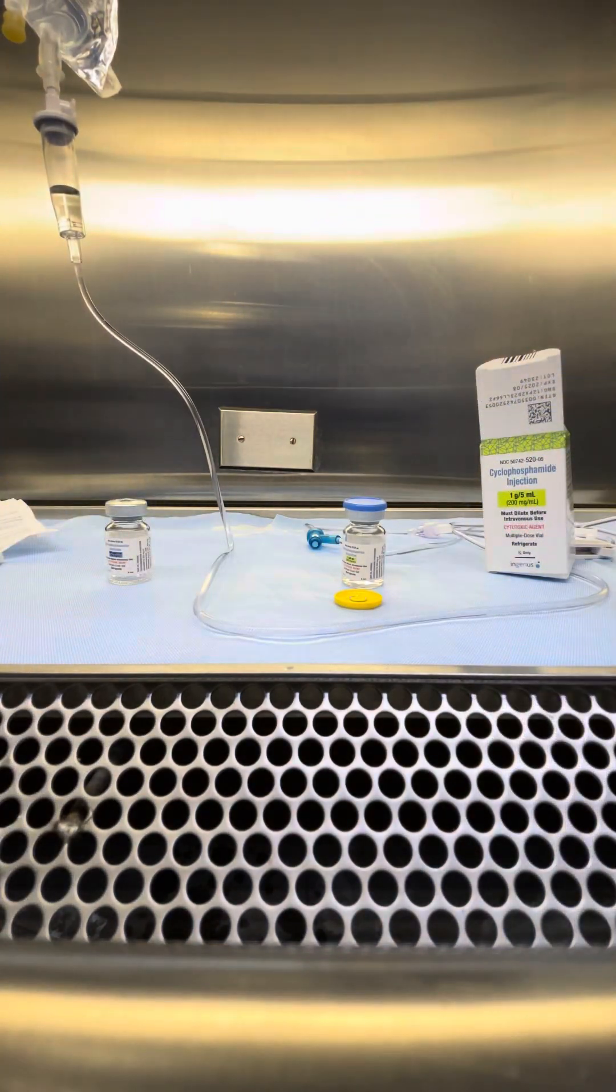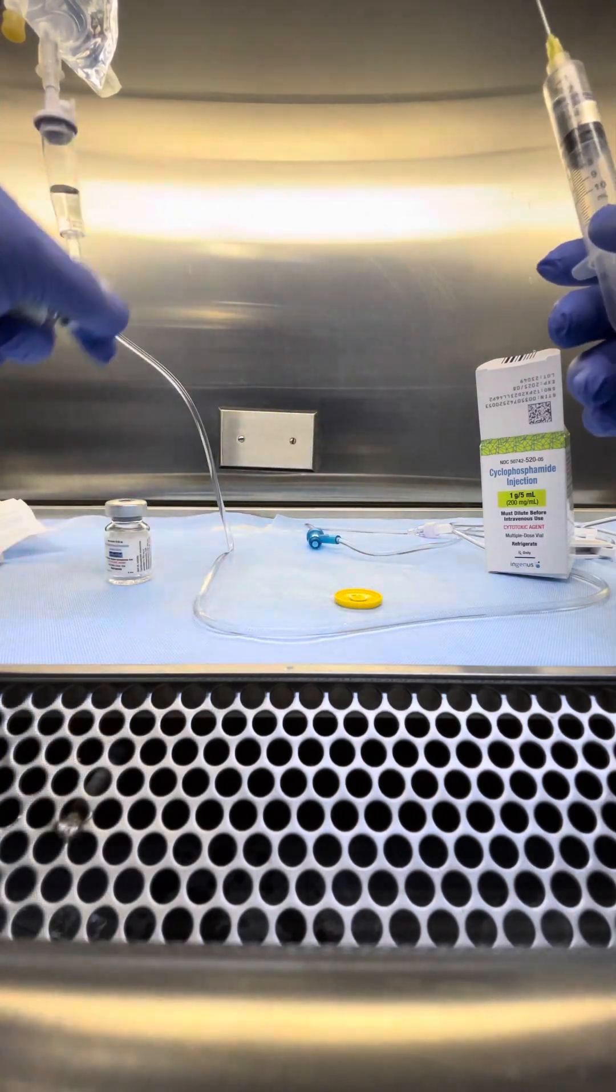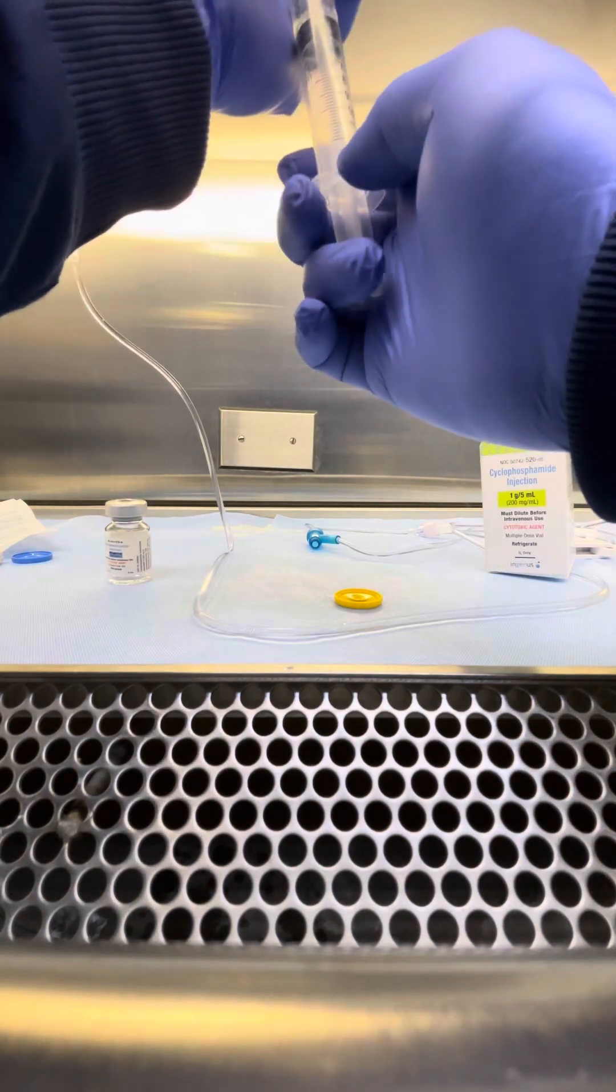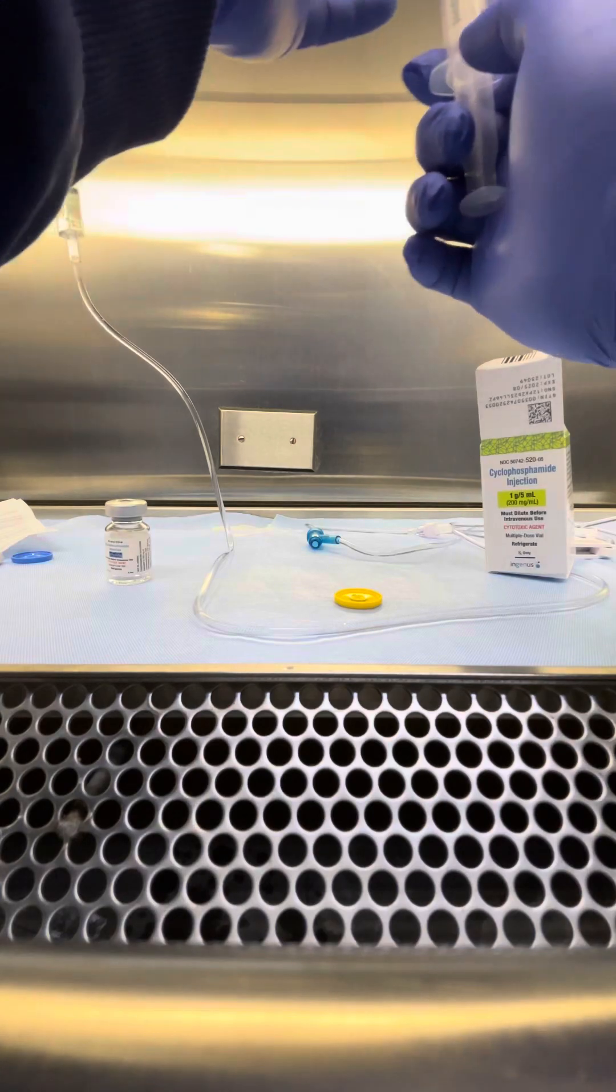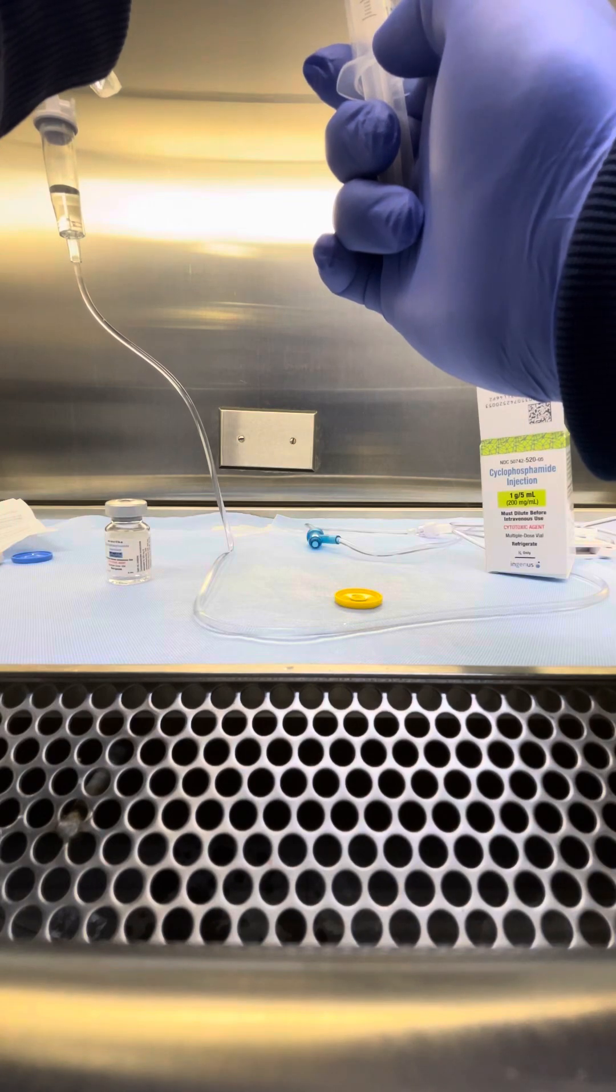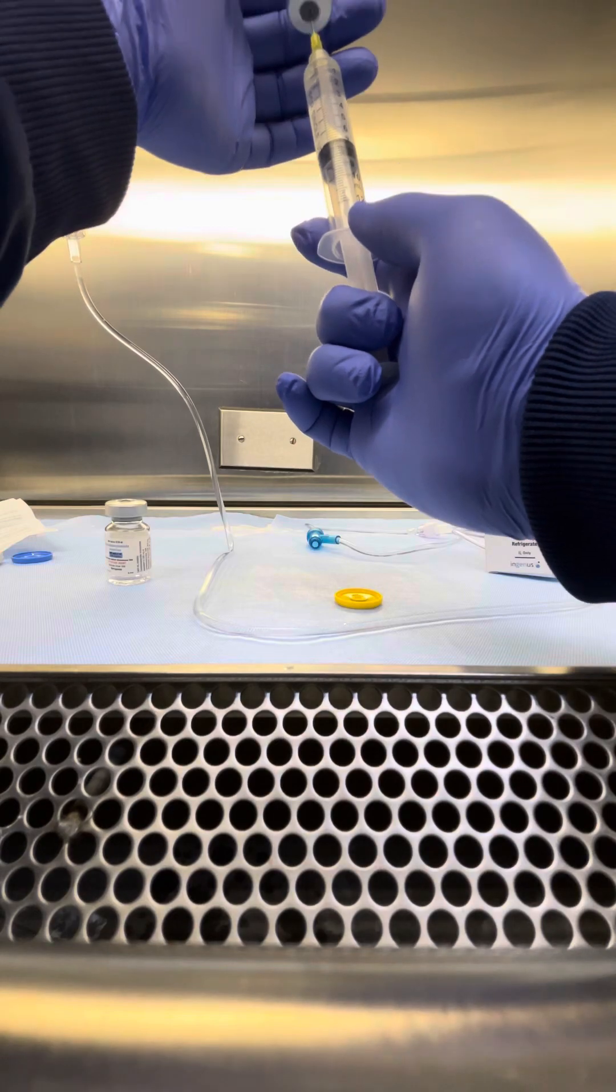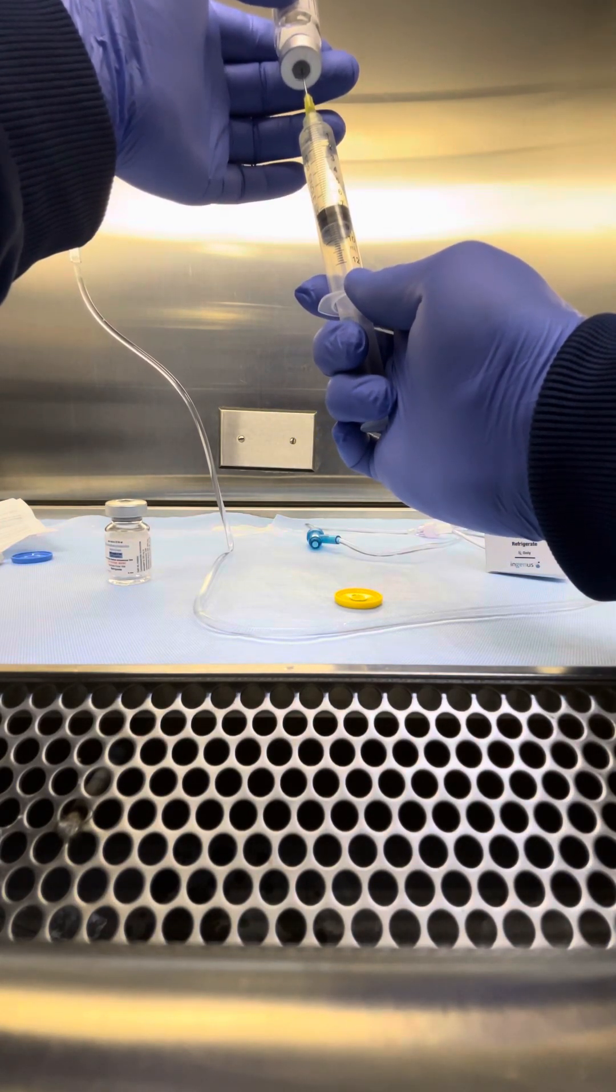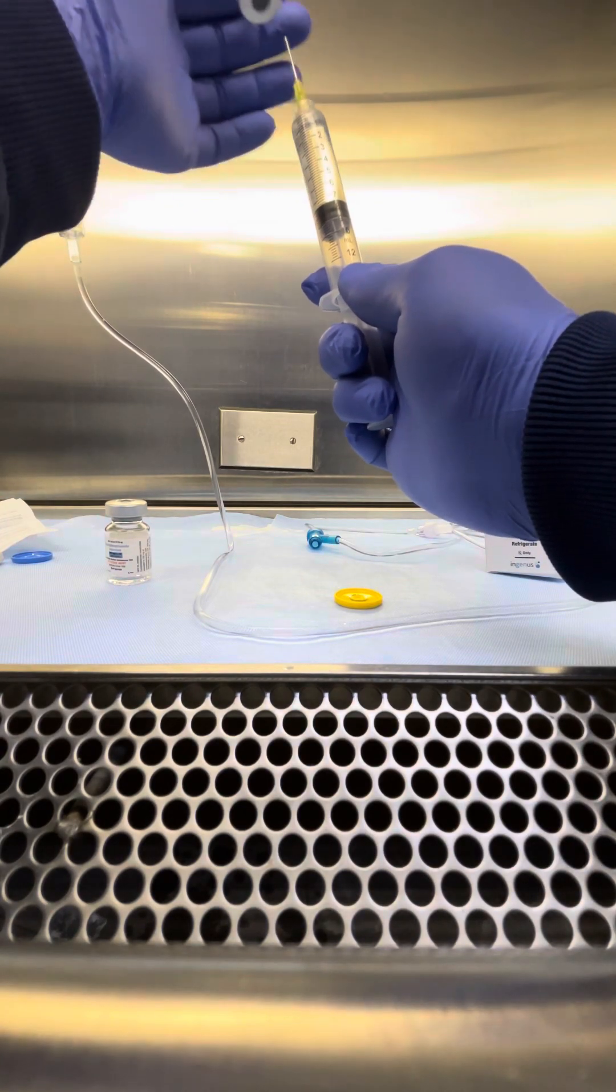And I can already hear, let me turn on my chemo blower. As you can see, there you go, 7.2.